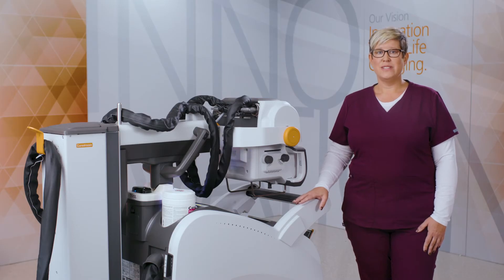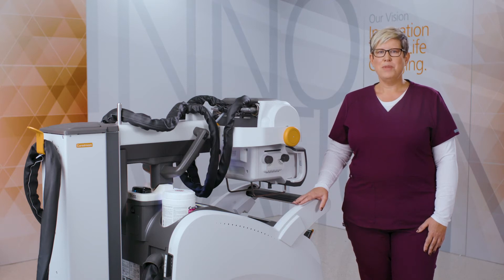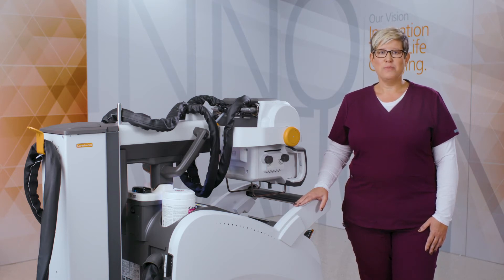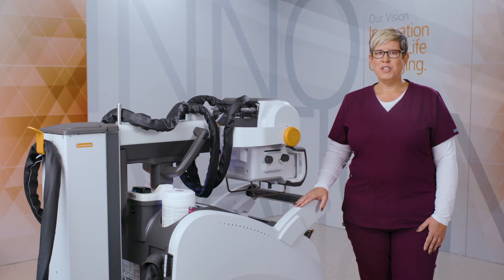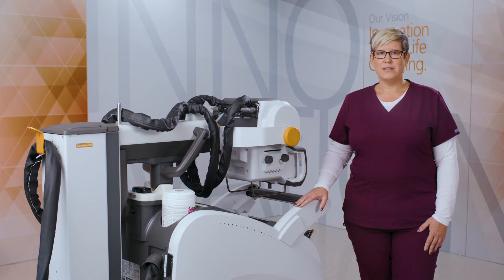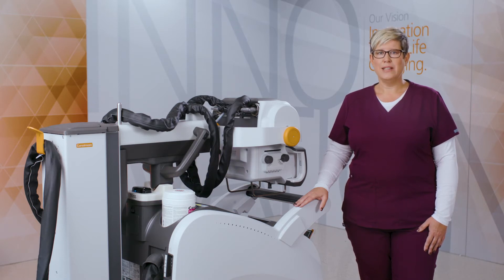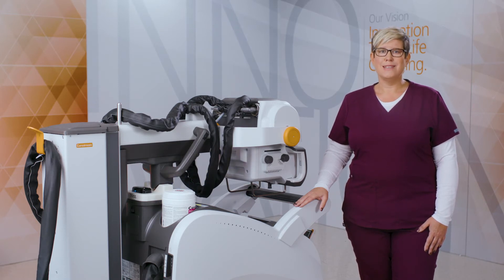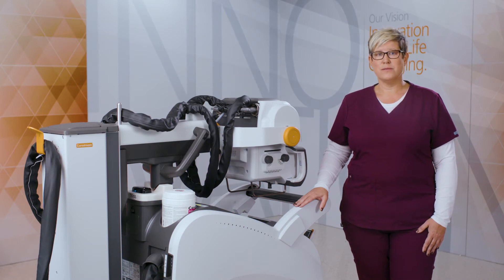Revolution uses ImageView software, the same platform as all other CareStream systems. This common user interface significantly reduces training time and allows the facility consistency among users.